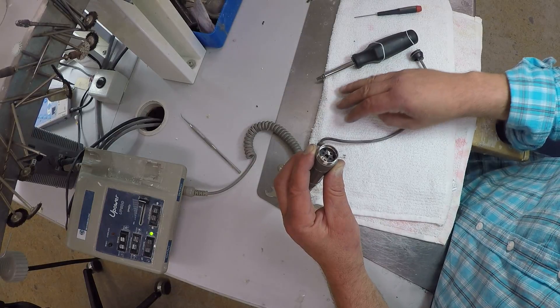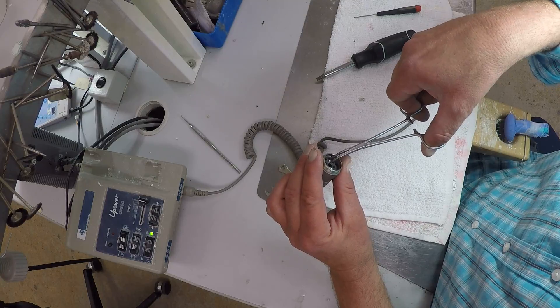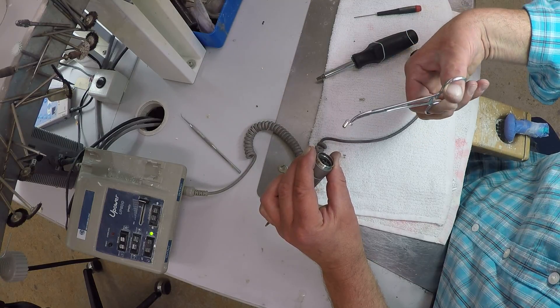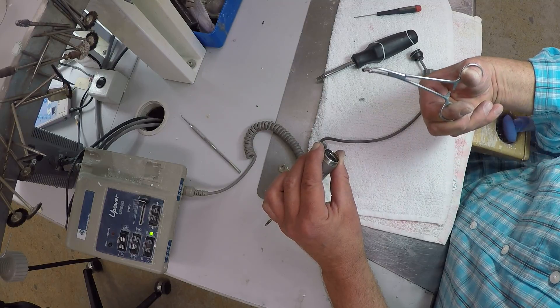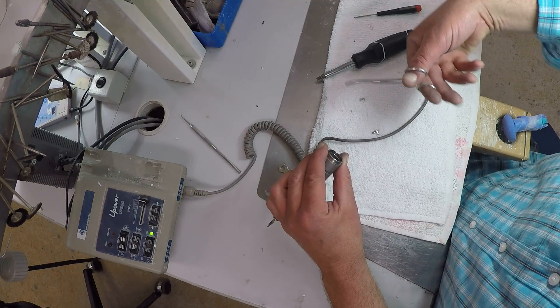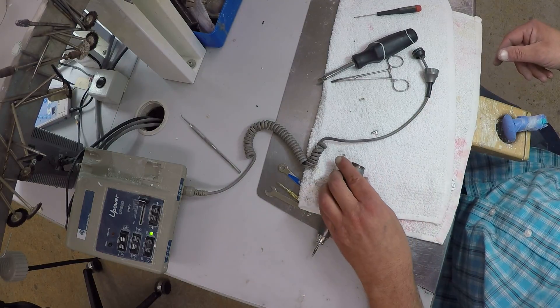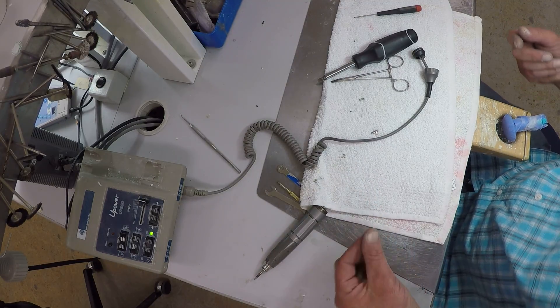Check out the screw. Look at that — it's empty. That means the carbon brush, which should look like a piece of carbon from a lead pencil, is completely worn. Let's see what's going on here. I've got some dust and fiber in there.